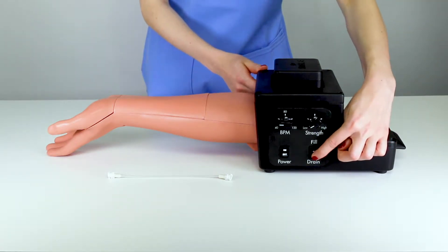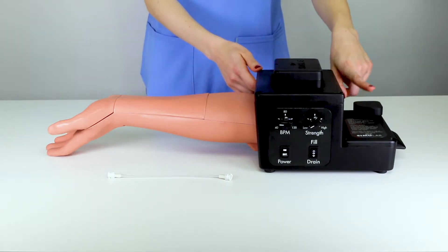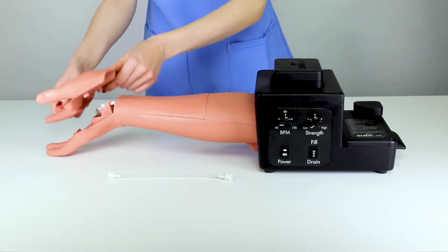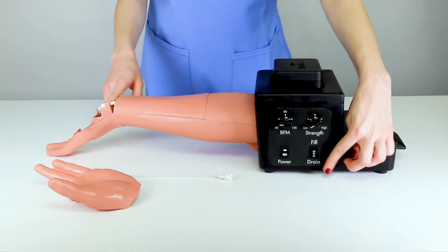This can be done by pressing and holding drain for 5 to 10 seconds. You will hear a distinct spraying sound from the fluid tank. You can ensure the vessel system is fully drained by removing the hand cover to view the fluid line as it empties.